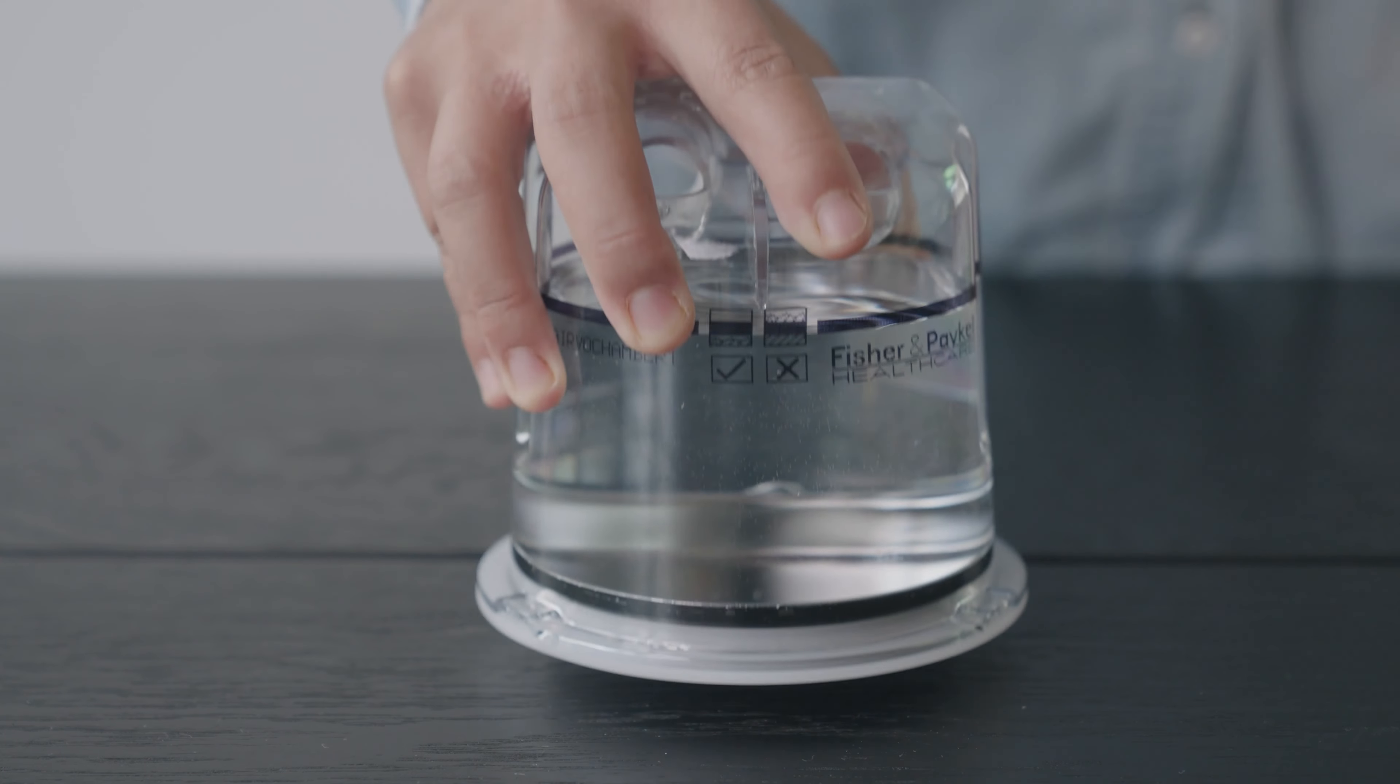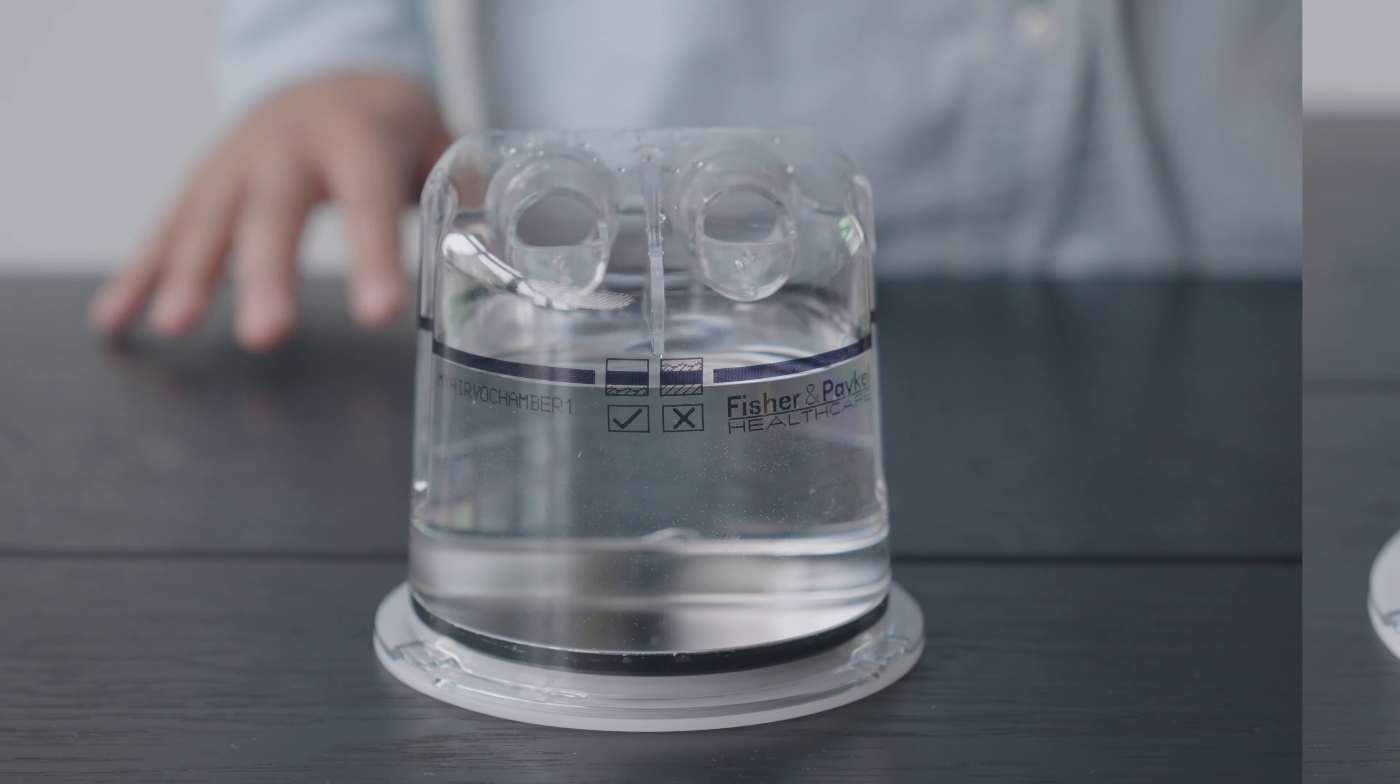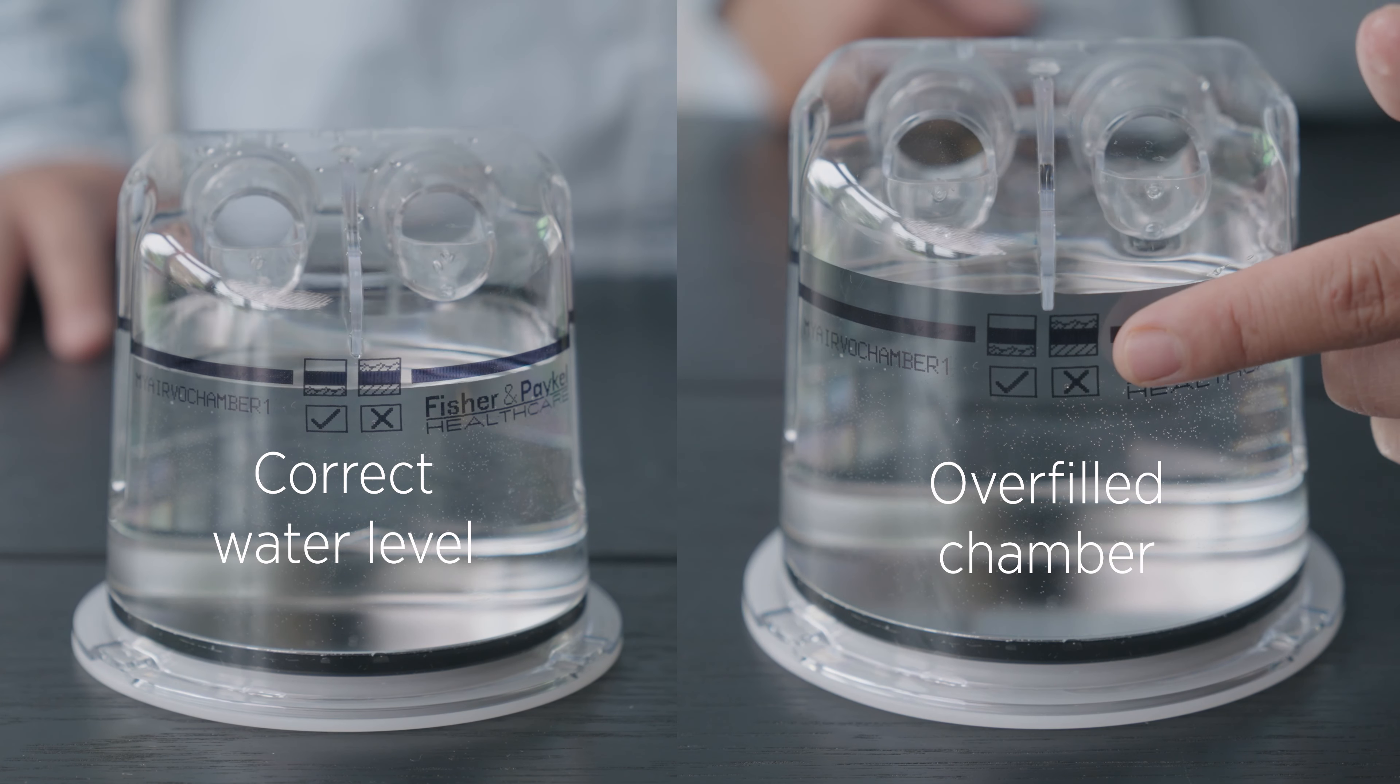Place the chamber on a flat surface to check that the water level is no higher than the maximum water line. Be careful not to fill past this line.